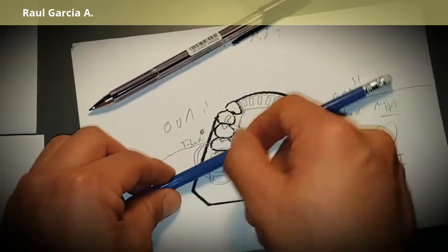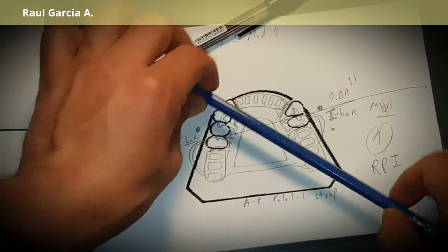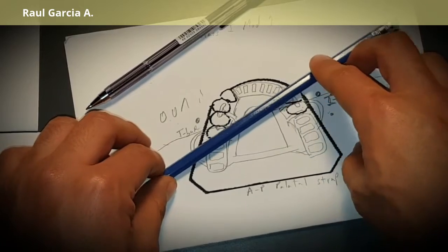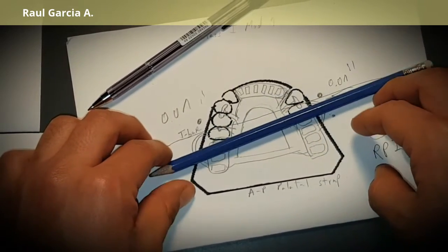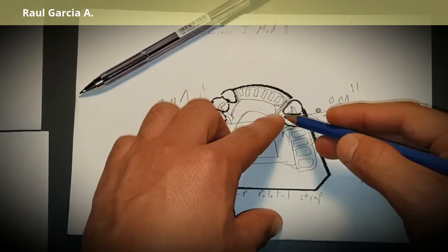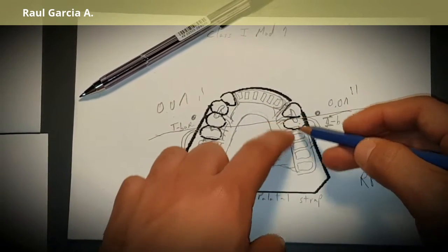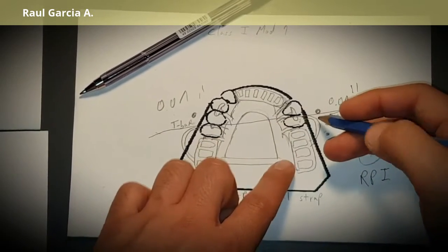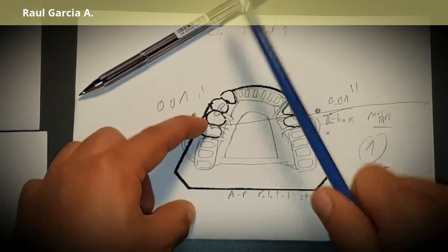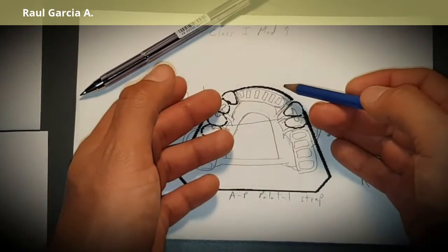For the other side, I analyze again — it's going to rotate like this. So I need something that covers that arc. Again, I check the canine — good abutment — and the first premolar. I place rests in the cingulum of the canine and the mesial fossa of the premolar. We already have an RPI here with another rest, so indirect retention is well covered.